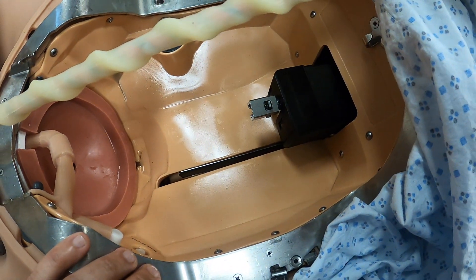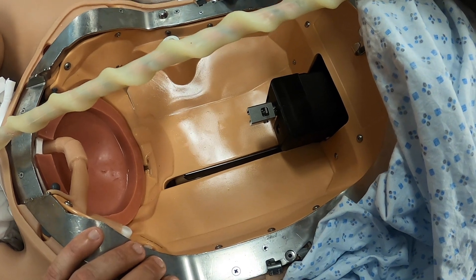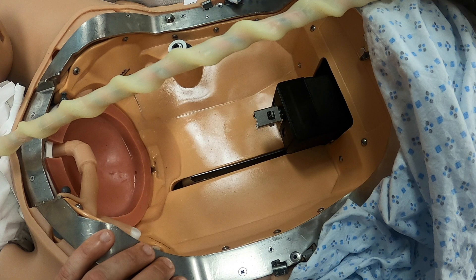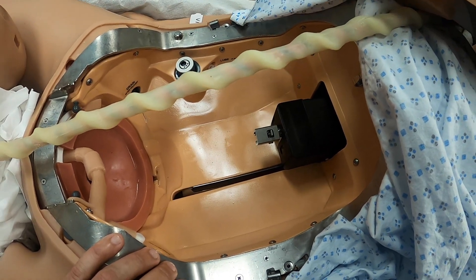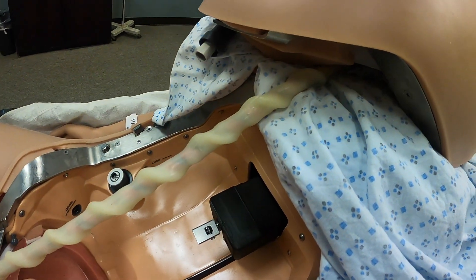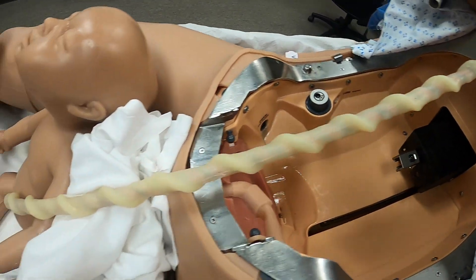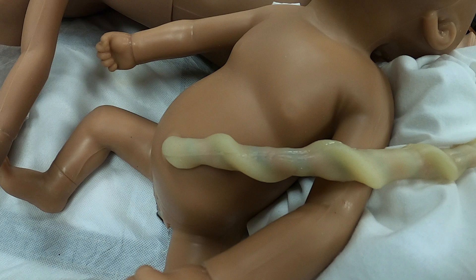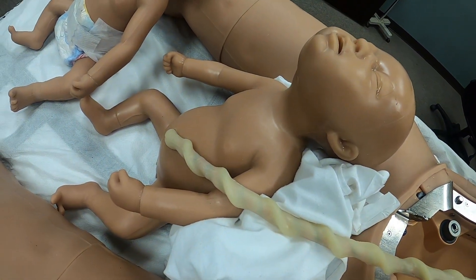With the birth canal, it can do normal cephalic deliveries, breech deliveries, nuchal cords, limb presentations — any presentation that a student is going to see in the field, we can represent using this mannequin. The umbilical cord is also attached and will be attached to the birthing mannequin as well.